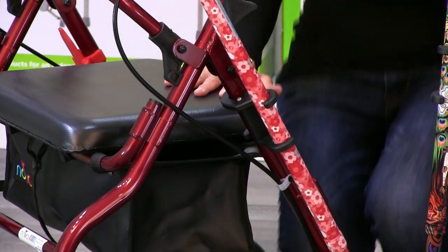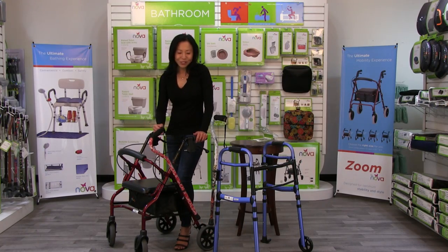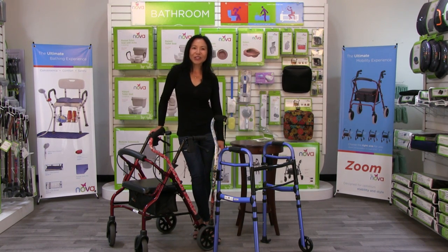Very simple. Now I have a cane with my walker, streamlined. I had to color coordinate the canes with the walker because it's all about style too. That's the CH-4000 cane holder — enjoy your cane with your walker together.